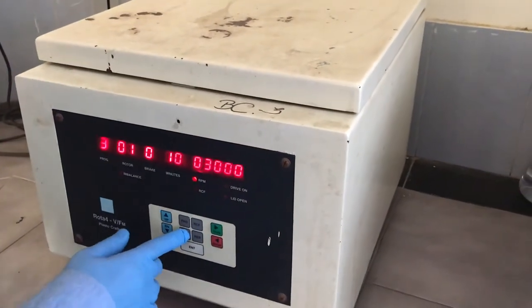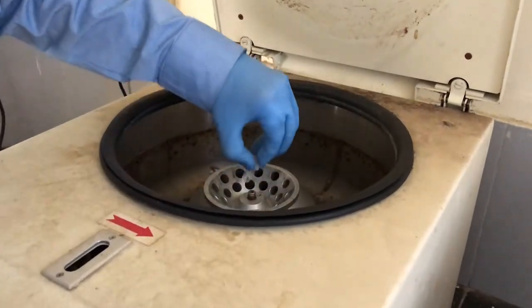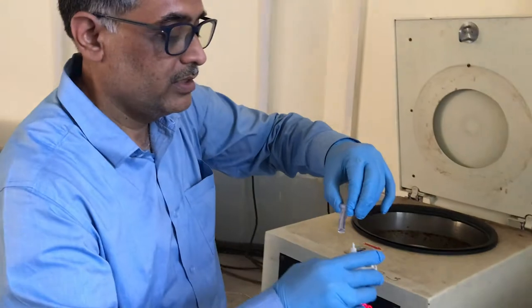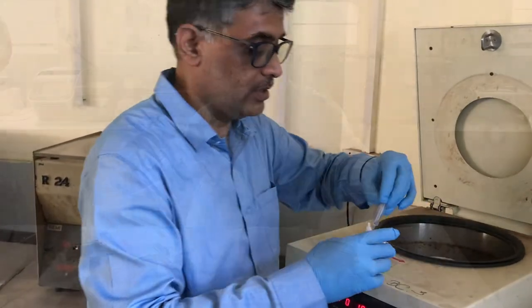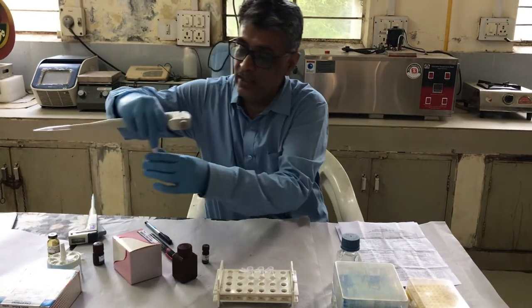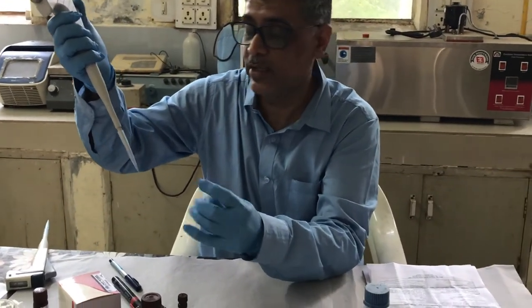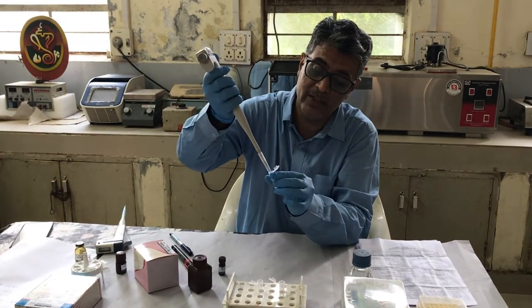Centrifugation is over. Let us see what has happened. This is our sample tube — you do not see much precipitate; it may be transparent. We will take 50 microlitre from the top without shaking. We have 1 ml of enzyme reagent in each of the three tubes. I am adding 50 microlitre of this centrifuged sample supernatant. This serves as our serum treated with the precipitating reagent to get rid of LDL, VLDL, chylomicrons, and other cholesterol. Our sample tube now has 1 ml reagent mixed with 50 microlitre of the supernatant.